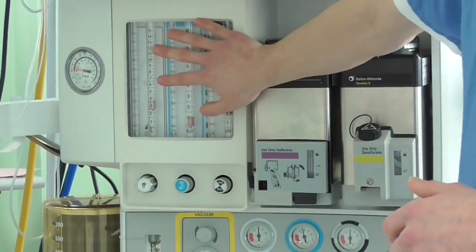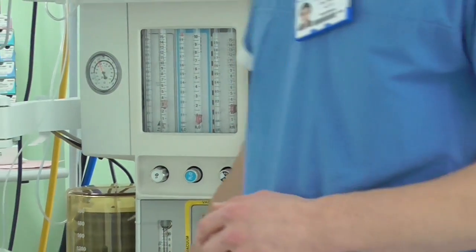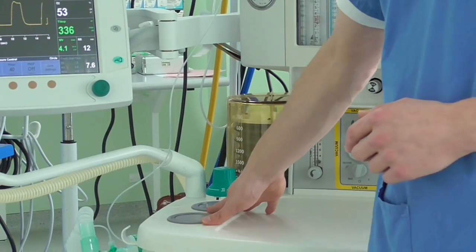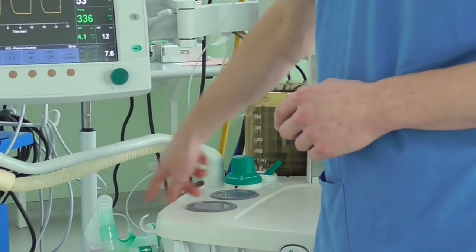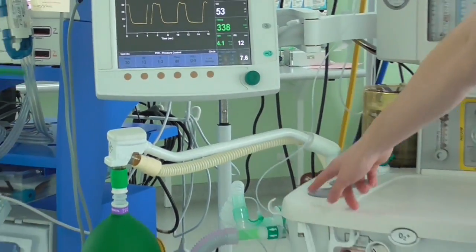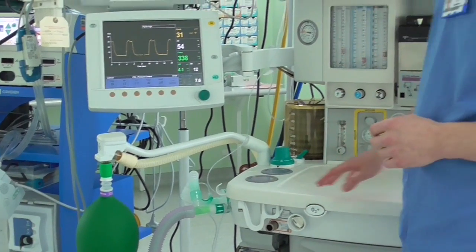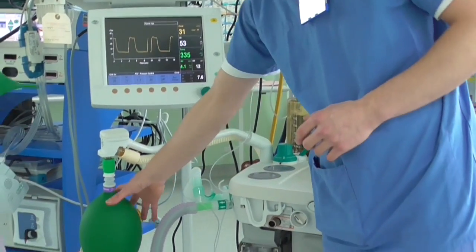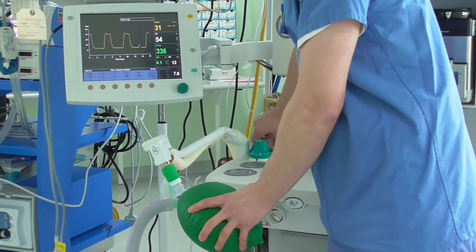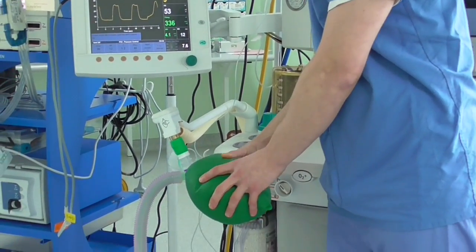The gas from this mixture proceeds through some one-way valves, enclosed here, along to the patient and then back. It then proceeds through either this green bag here, which can be squeezed, providing manual ventilation to the patient — as I squeeze this bag, the patient's lungs inflate.